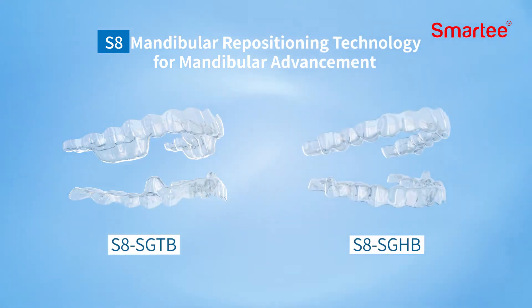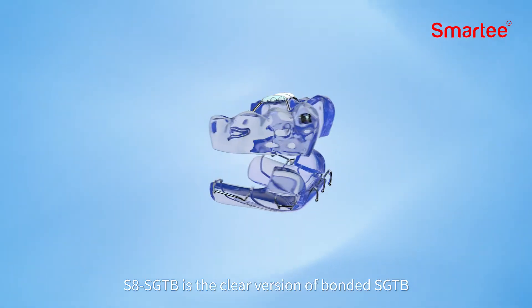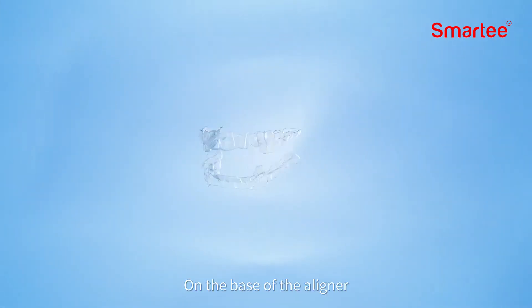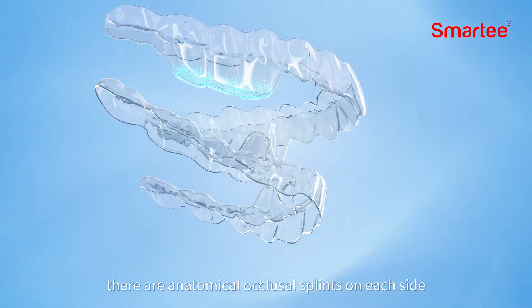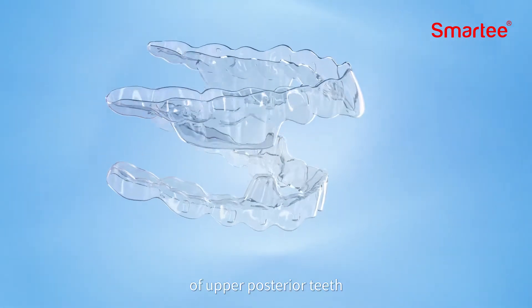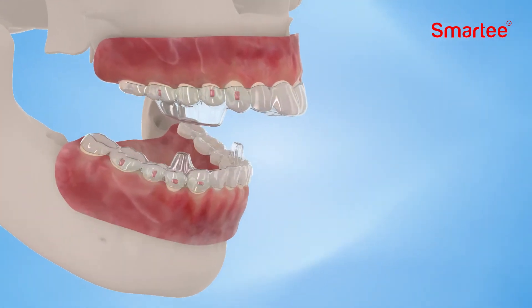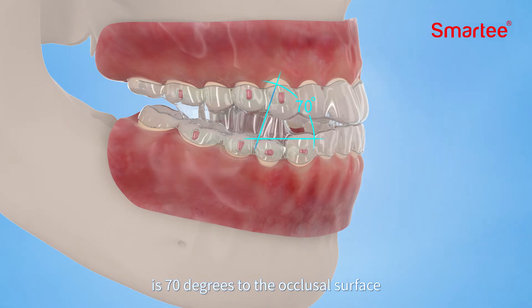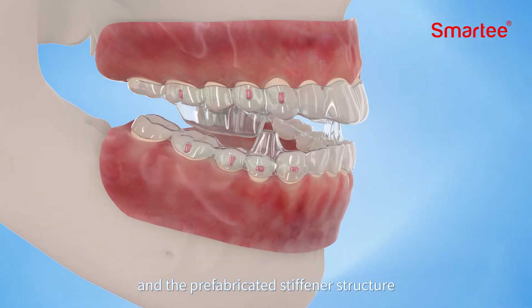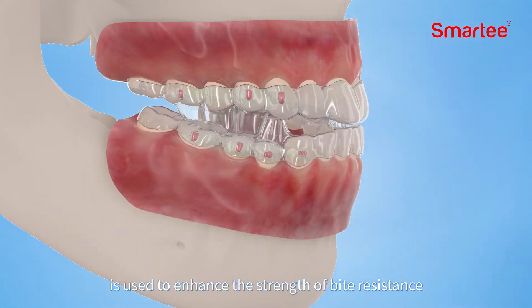S8 SGTB is the clear version of bonded SGTB. On the base of the aligner, there are anatomical occlusal splints on each side of the upper posterior teeth and locking appliances in the mandible. The interactive surfaces of the two are 70 degrees to the occlusal surface, and a prefabricated stiffener structure is used to enhance the strength of bite resistance.